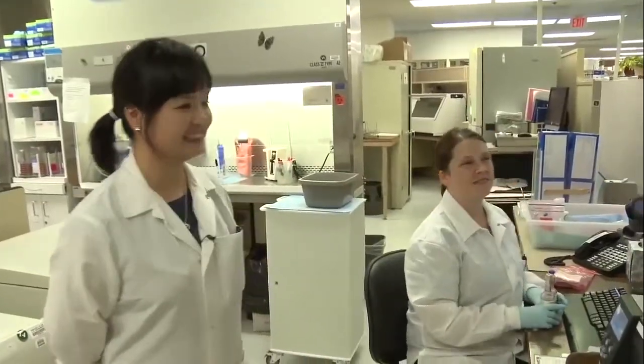Hey Melissa. Okay, this looks odd. So I got four sets of blood culture bottles. So they labeled them all four with... Same label? Yeah, with different sizes. Oh, I think I know about this culture. Thank you very much.